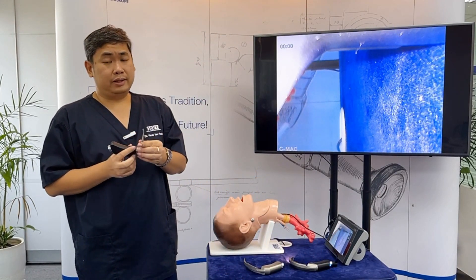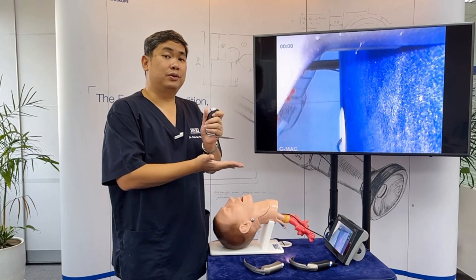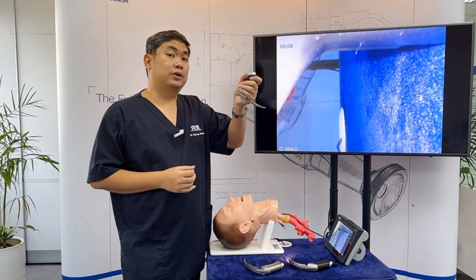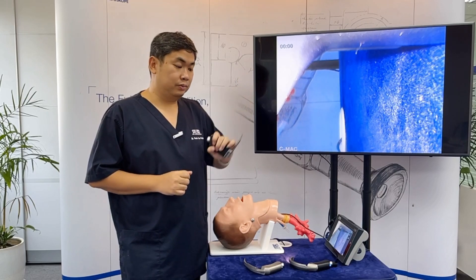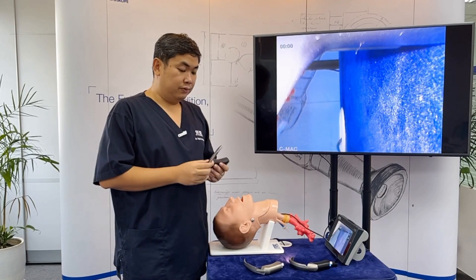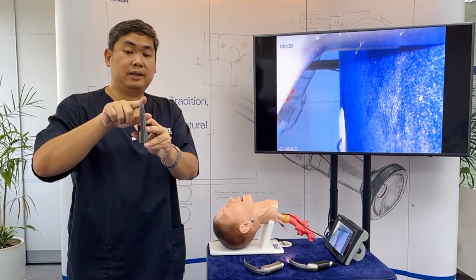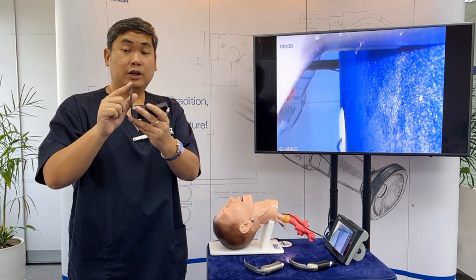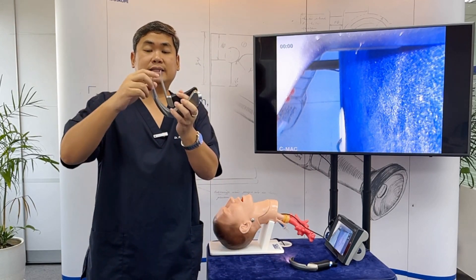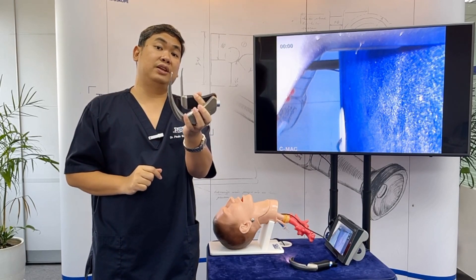When you're using a Miller blade or a straight blade, you go under the epiglottis and lift it so that you will see the vocal cords and can proceed to intubation. Do not use a straight blade on the vallecula. As you can see here, the tip of the Miller blade is sharp, whereas the tip of a curved blade has a rounded end so that it will not lacerate the vallecula.